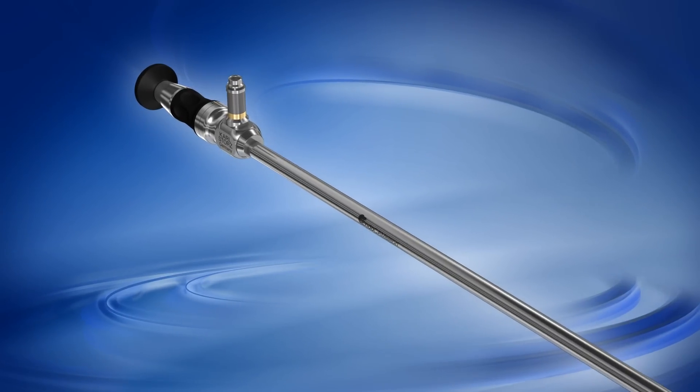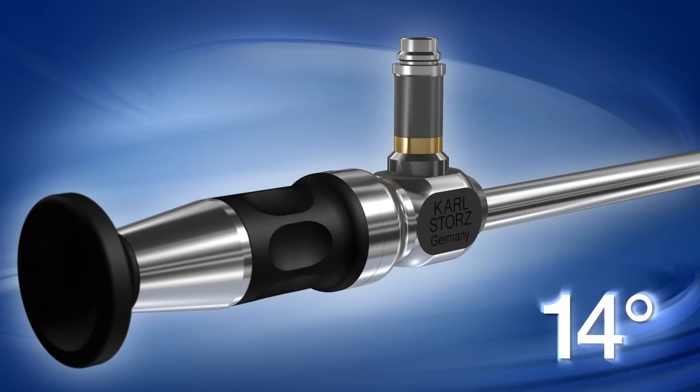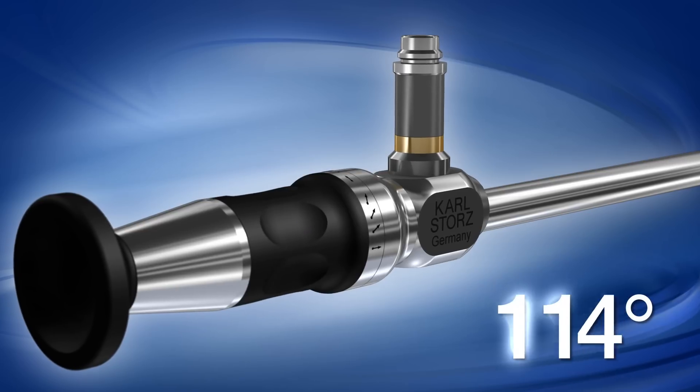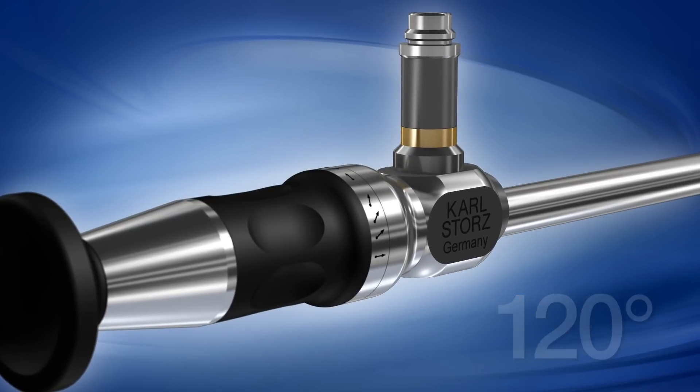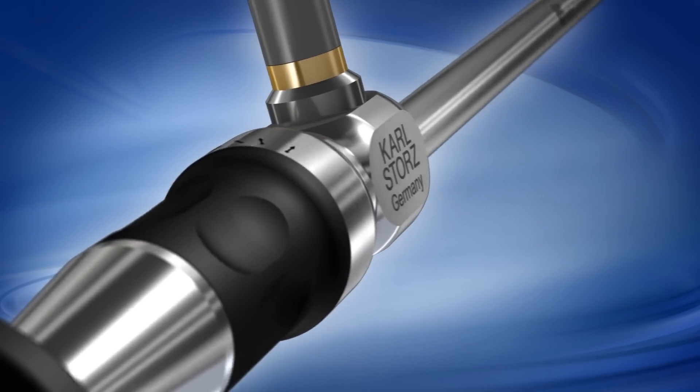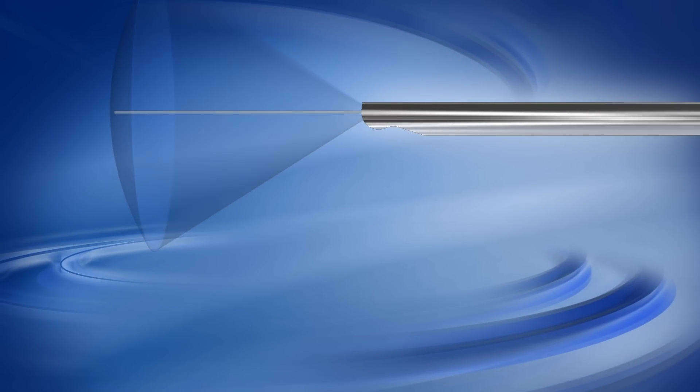The EndoChameleon allows adjustable setting of the viewing angle between 0 and 120 degrees, which allows us to satisfy all requirements with one single telescope.